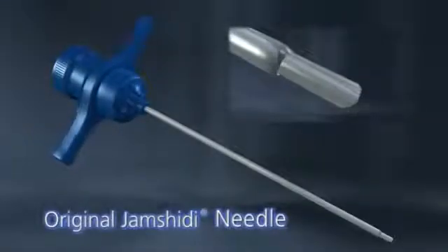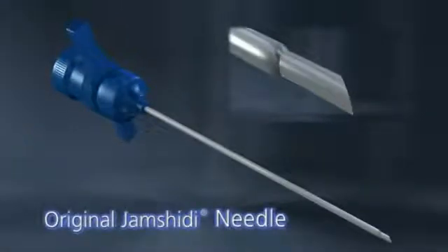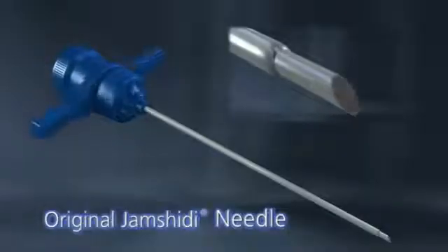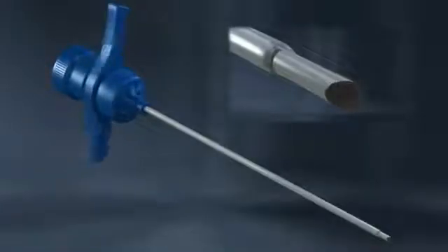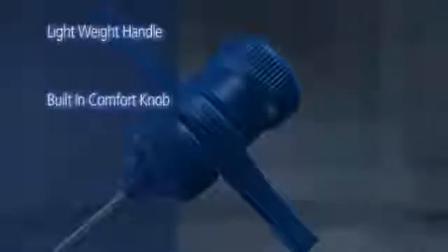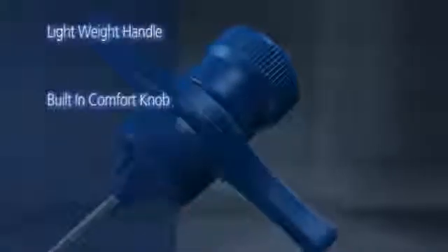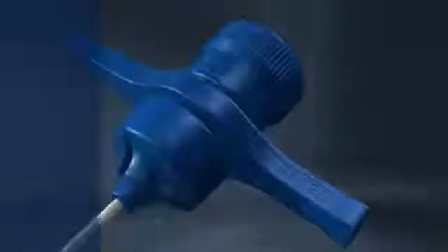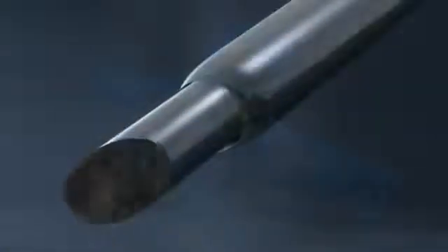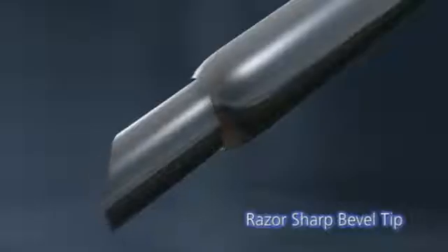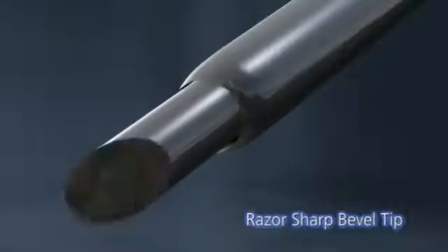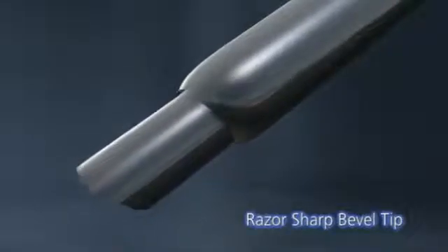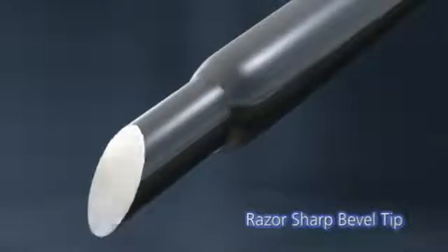Since its introduction, the original Jamshidi bone marrow biopsy and aspiration needle has been a best-seller decade after decade. It features a lightweight handle with a built-in comfort knob that allows clinicians to apply sufficient pressure without discomfort. The razor-sharp bevel tip permits easy coring of the bone and the distal taper tip facilitates recovery of the bone marrow sample without altering its architecture.